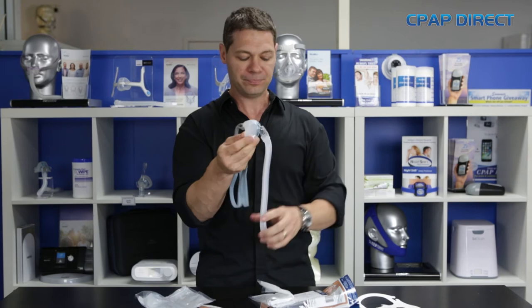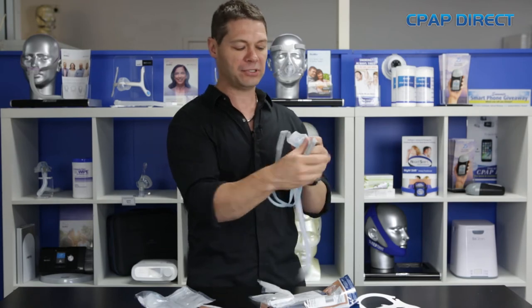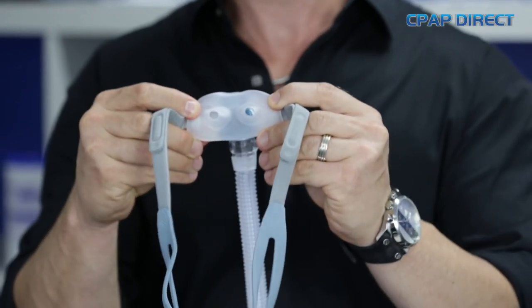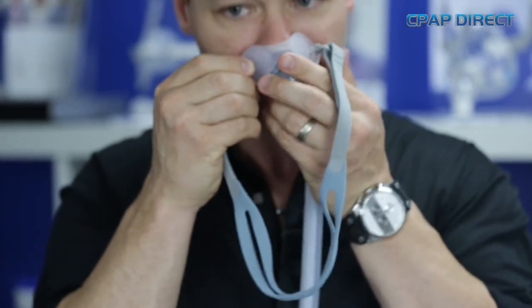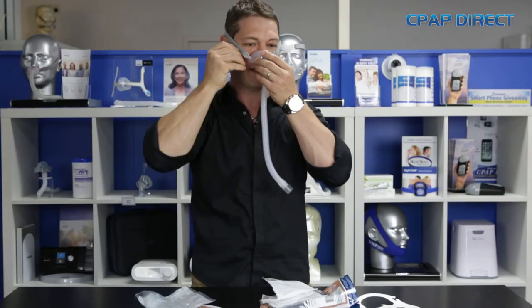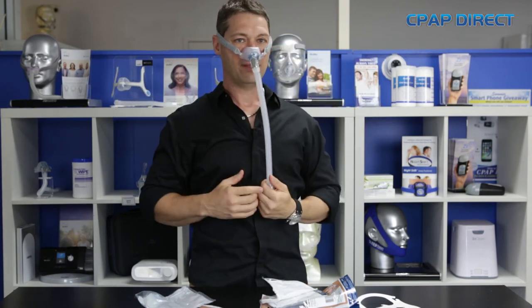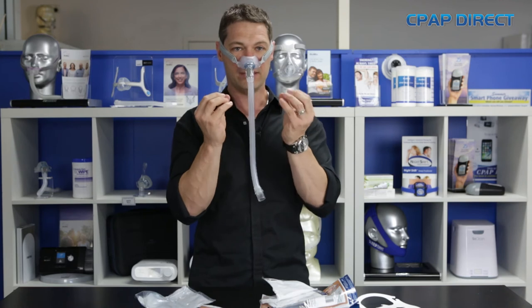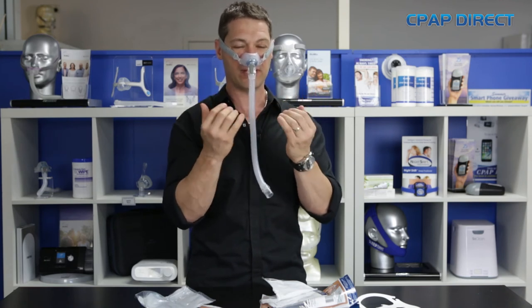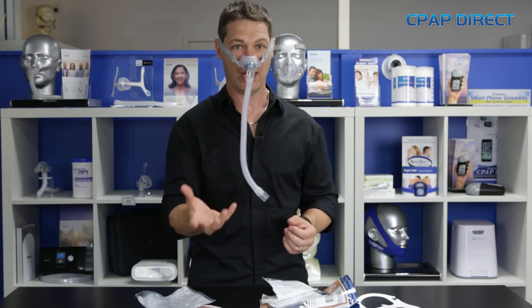The way to put this on — it has a short tube which goes into your long tube. Start the air, and you use your thumbs to hold the pillows apart. So I would put the air on, use the thumbs to hold them apart, position into my nose, over the head, and just adjust. It sits quite nicely on the face, very, very good seal, and these pillows inflate into the nose — they get a seal by using the airflow from your CPAP machine. Very, very nice, extremely comfortable, doesn't irritate my nostrils at all, and I'm a big fan.